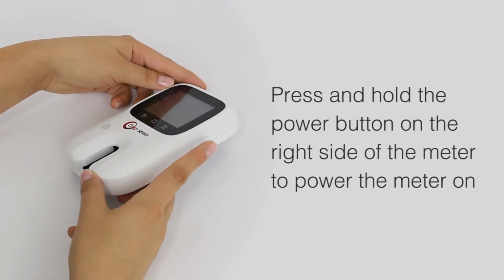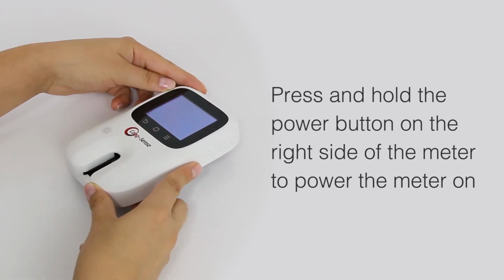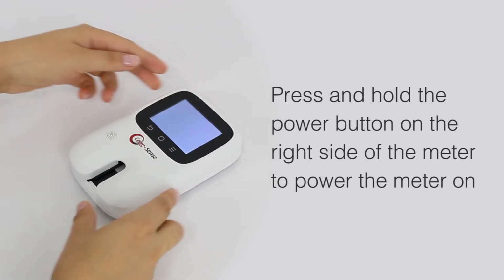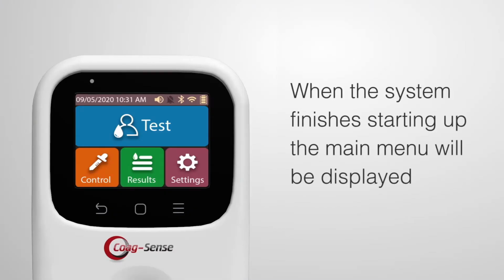Press and hold the power button on the right side of the meter to power the meter on. Place the meter on a stationary, level surface for testing. When the system finishes starting up, the main menu will be displayed.